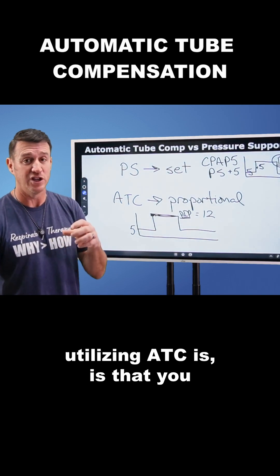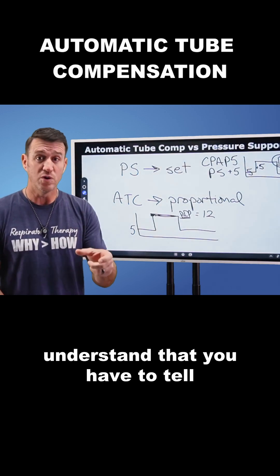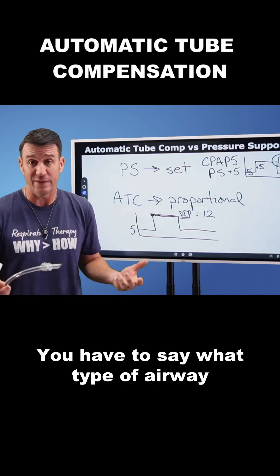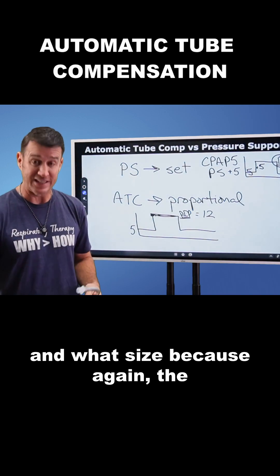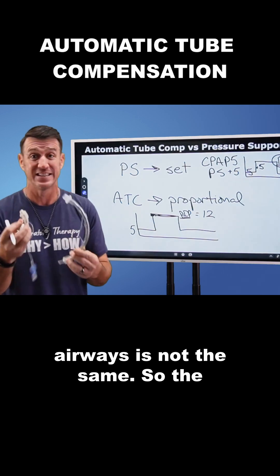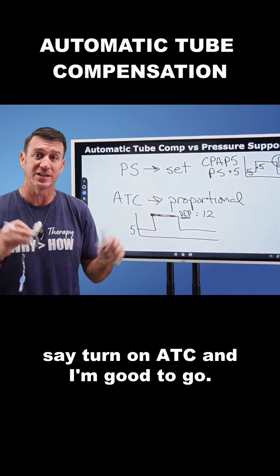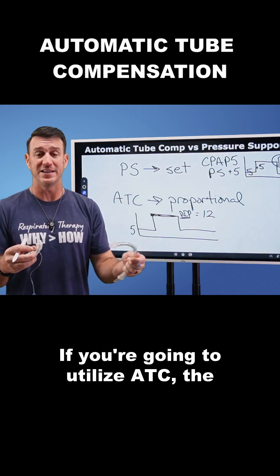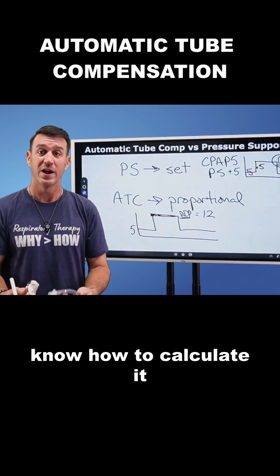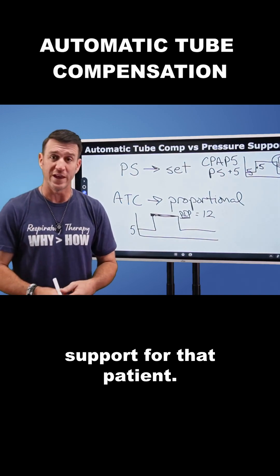The most important thing when utilizing ATC is that you understand you have to tell the ventilator what size airway you have — what type and what size — because the resistance of artificial airways is not the same. You can't just turn on ATC and be good to go. The ventilator needs you to input the airway information so it can calculate appropriately and provide the right support for that patient.